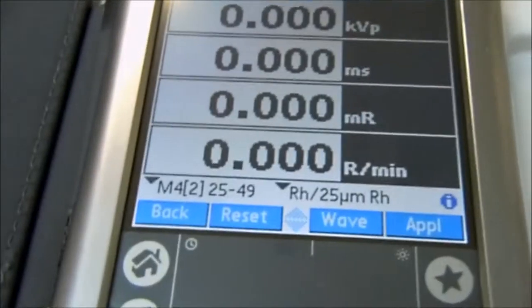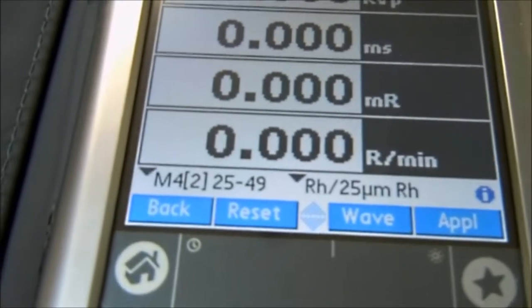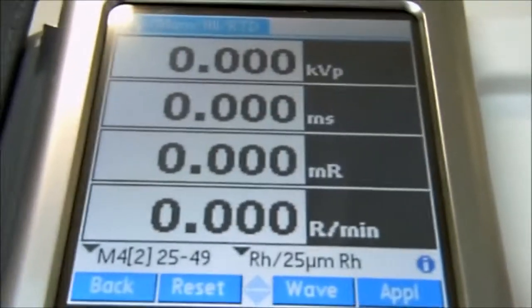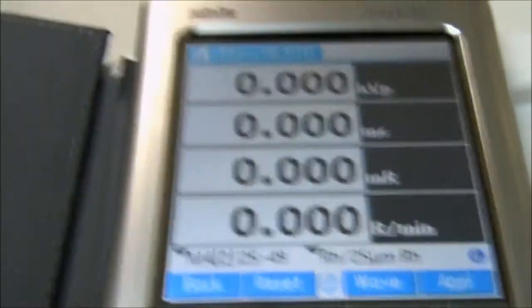I made the exposure, it came back, and the position check said it's okay. Now I'm ready to make an actual exposure.